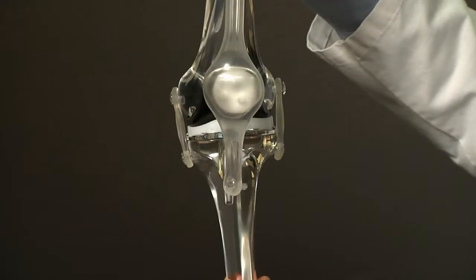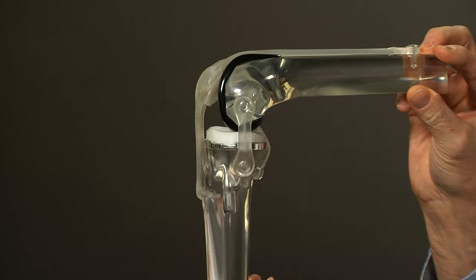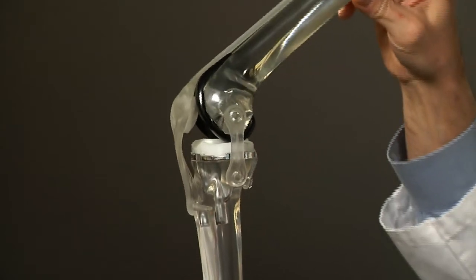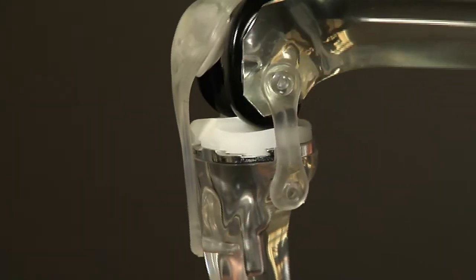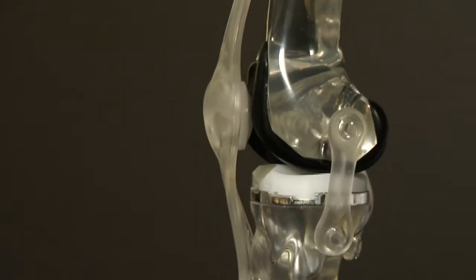From the front: fully straight and bent knee. And on the side view, you can see how the kneecap rides in that groove on the end of the thigh bone to give you power and strength.